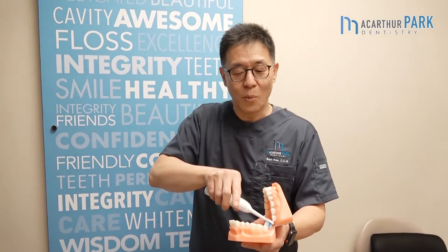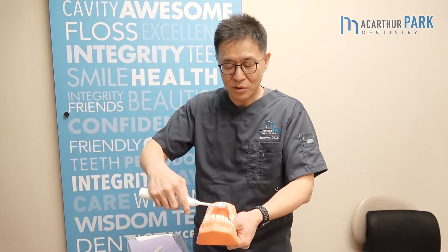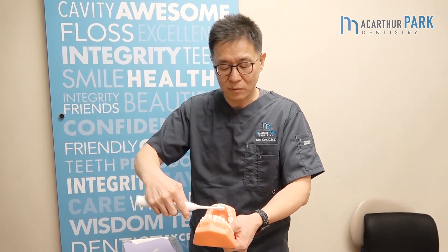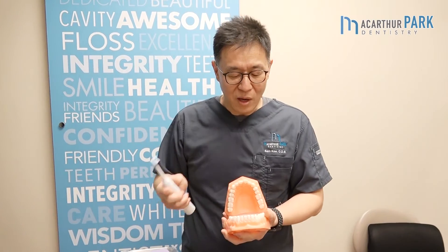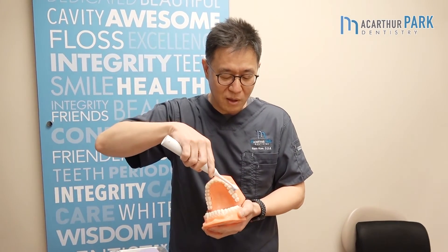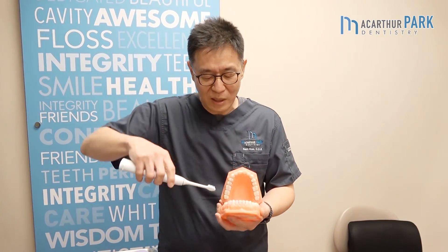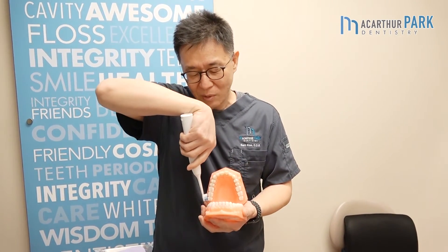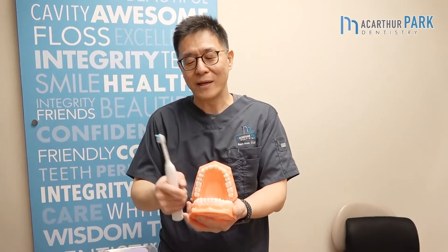Then the last minute, you go back to areas that you missed. A lot of patients build up plaque or tartar really quickly, so concentrate on the back of your lower teeth. Also, if you are right-handed, it's easy to brush the left side but harder to brush this right side, so spend extra time brushing outside on this right side.